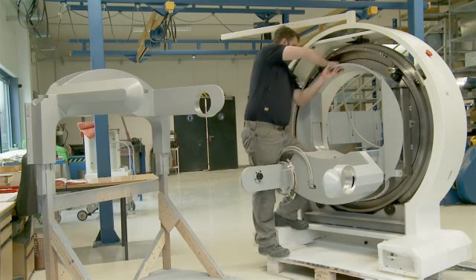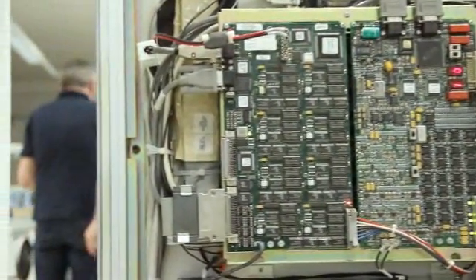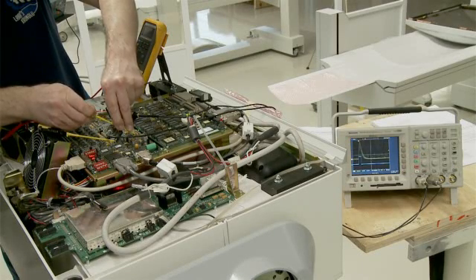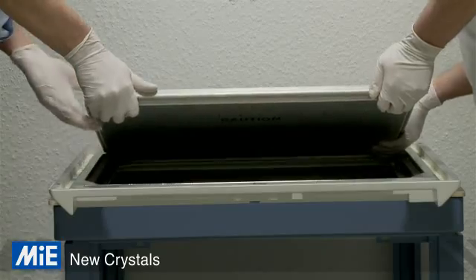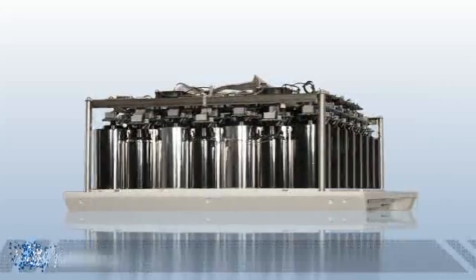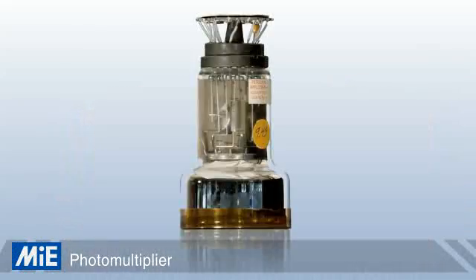The configuration and calibration of the detectors are essential for the quality of the image. In this sensitive area, passive components are cleaned and the detector electronics are tested. One of the most important steps is the renewal of the highly sensitive sodium iodide crystal. To guarantee high image uniformity, selected photo multipliers are used.